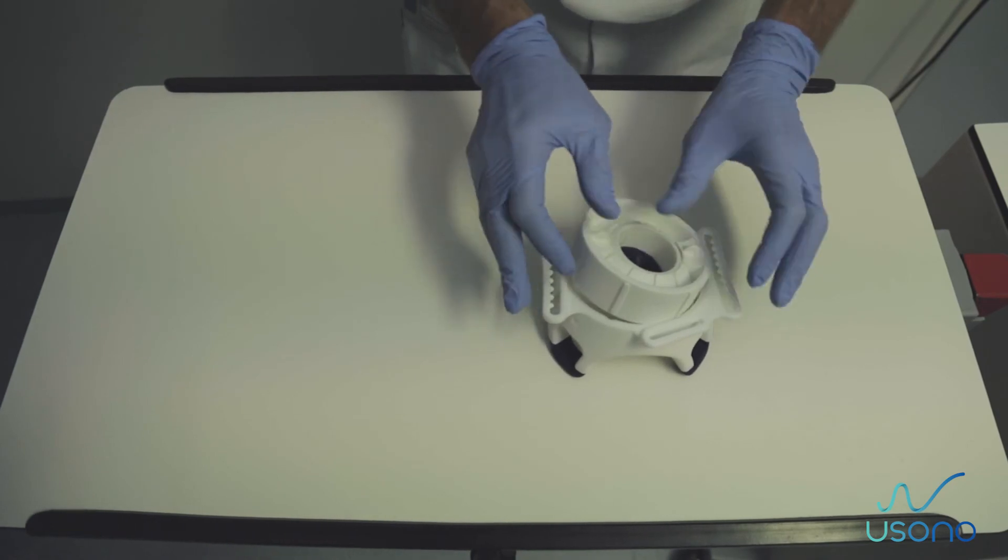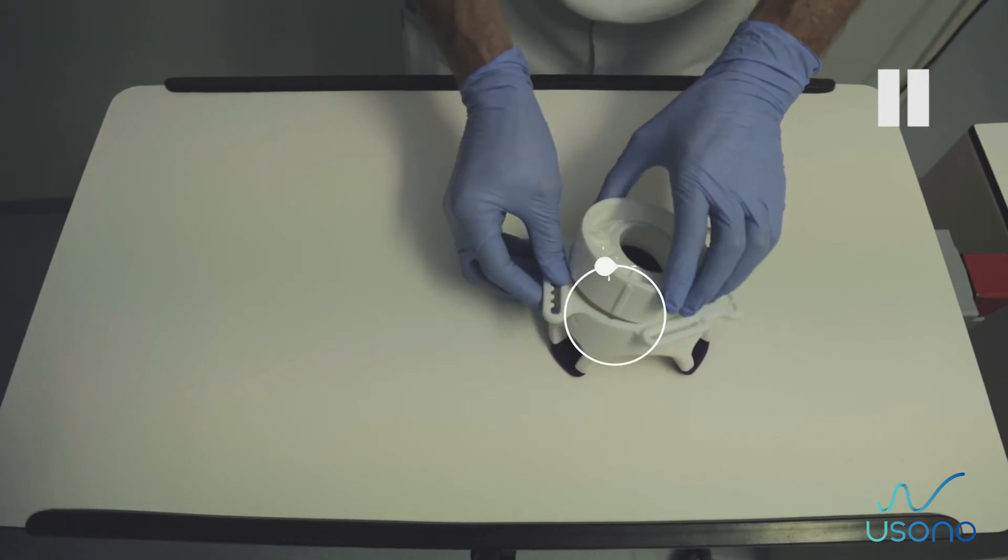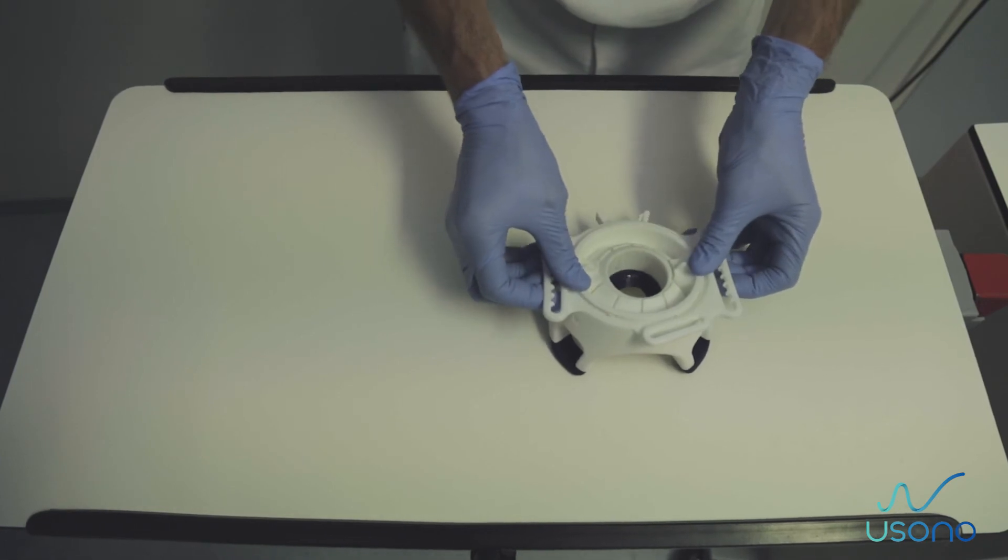Match the protrusions on the sphere mechanism with the slots in the base. Push the sphere mechanism in the base.